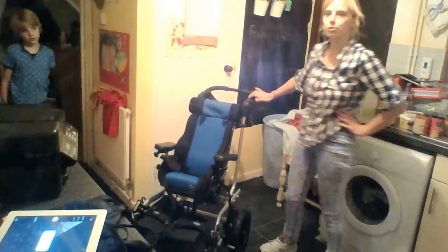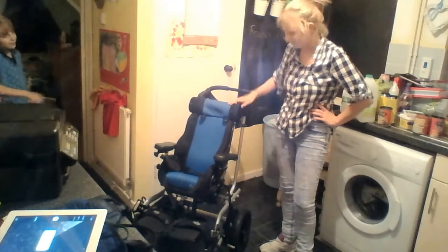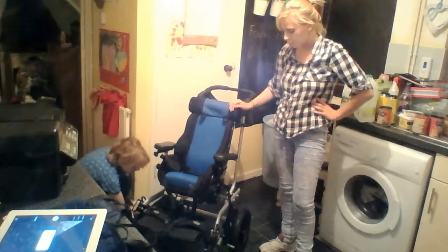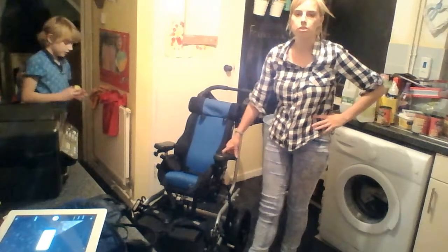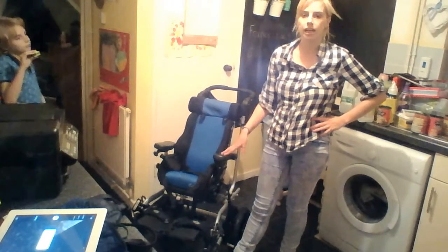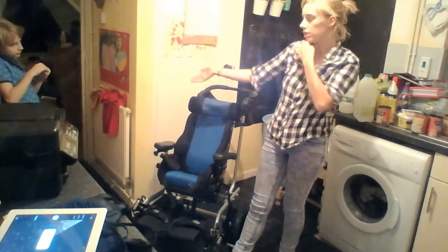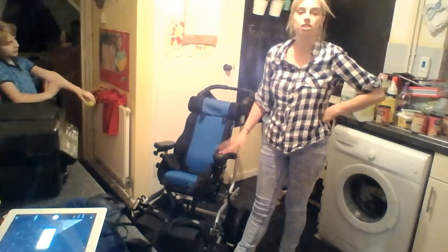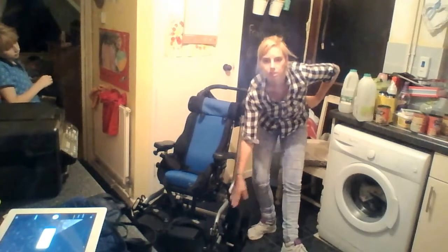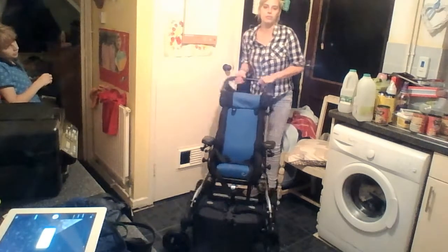They are puncture-proof tires — the kind you don't have to blow up, and they won't get a puncture. We've never had one. This is a size two seat — he's going up soon to the size three which is a bit bigger. This is the compact frame but it will go right up to adulthood, even on the compact frame. So if you've got a child who grows, they can still sit in it — you simply change the seat to a different size. It is quite a wide shape as you can see.